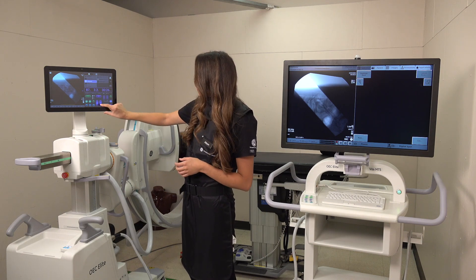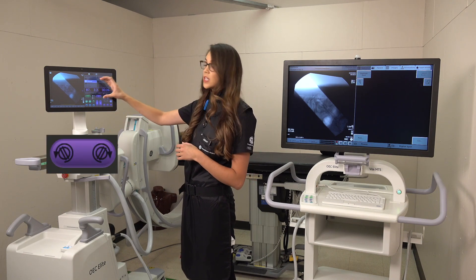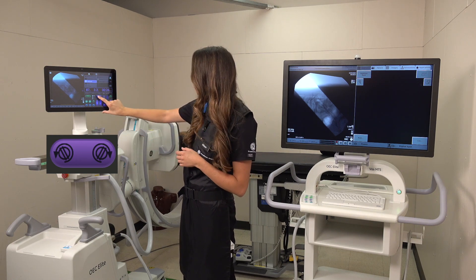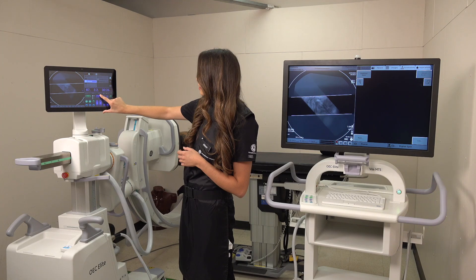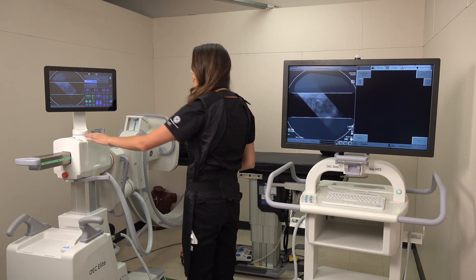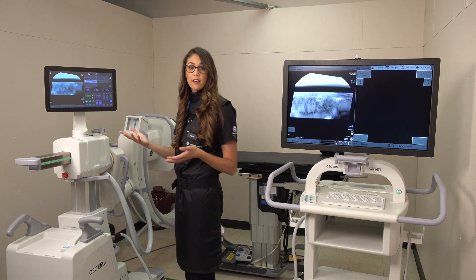At the very top here you have a rotation function that will actually rotate your linear collimation over your area of interest. Once you rotate, get that nice and centered up, open that up a hair, and take our new picture — and there you have it.